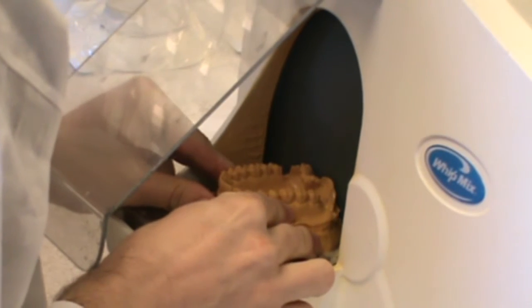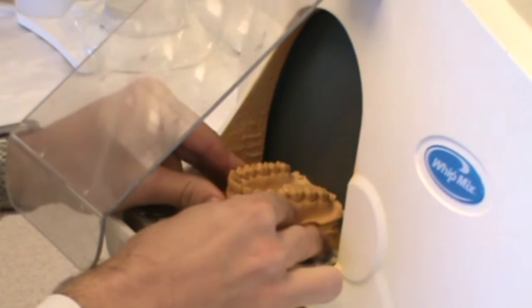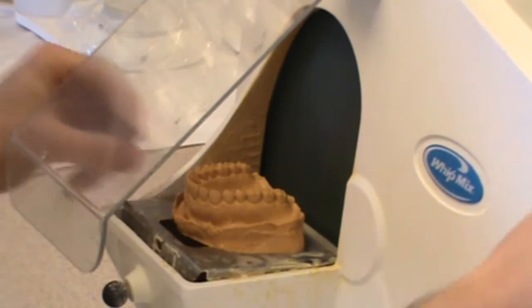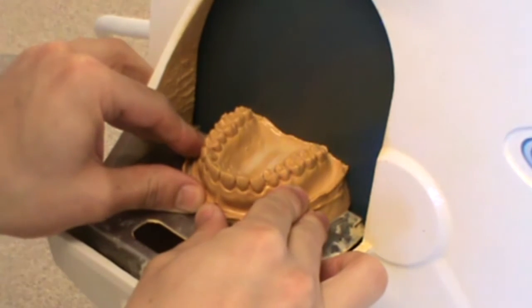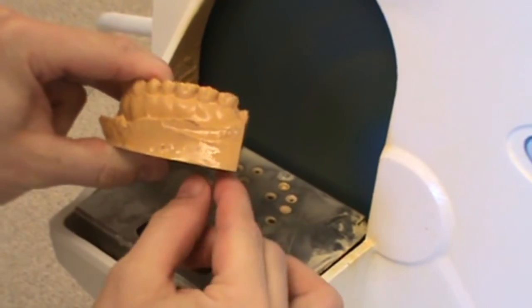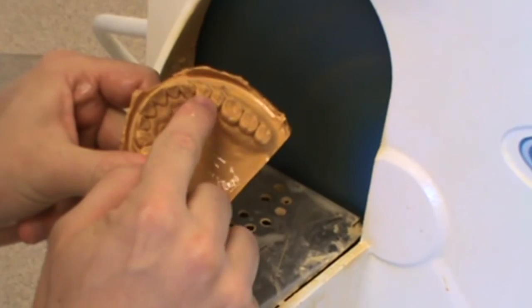I'm going to trim the back again to make it perpendicular with the bottom of the cast, and this time I'm bringing it in closer to almost where I want to finish it. I don't want to carve into any anatomy that I captured on the cast, but I need to get it close to where I'm going to finish the cast. The back and the bottom of the cast are perpendicular. Every now and then I rinse it off in water to make sure any debris is being removed.